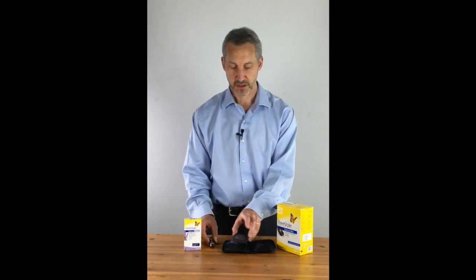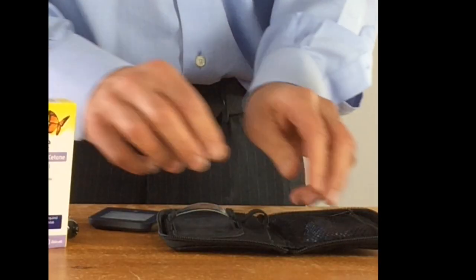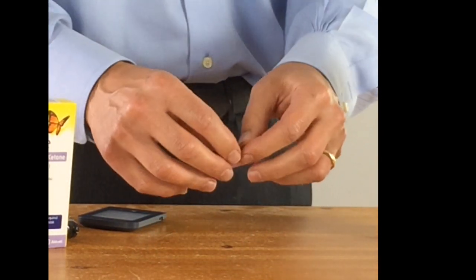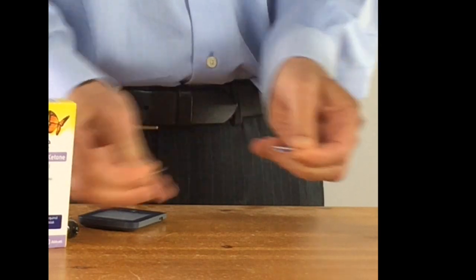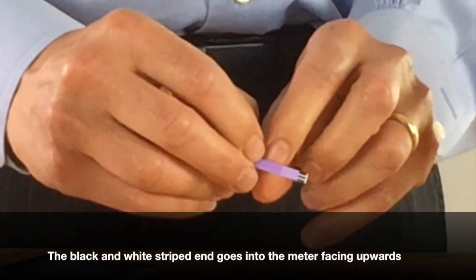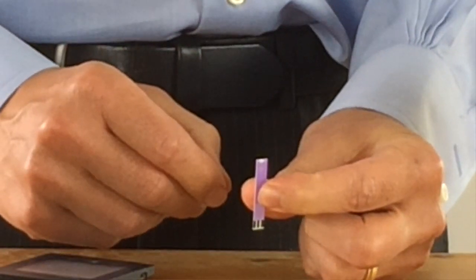So let's go ahead now and test our ketones. The first thing we're going to do is get a ketone testing strip and open the packet with the ketone testing strip. This has two ends: one which has black and white strips on it, the other has a white stripe on it.